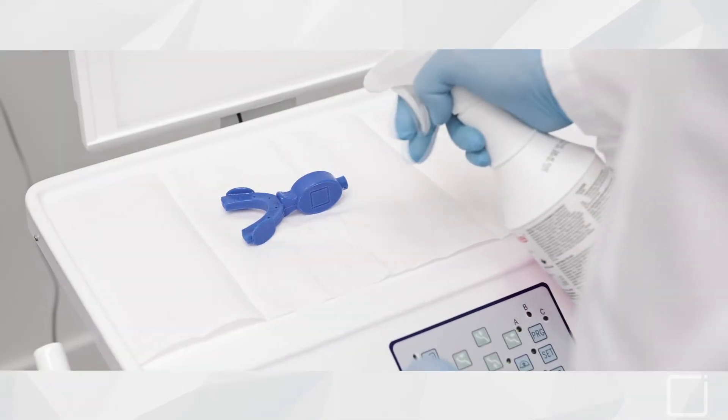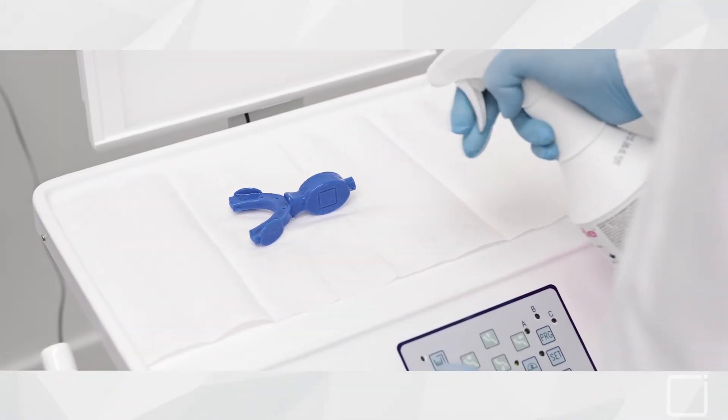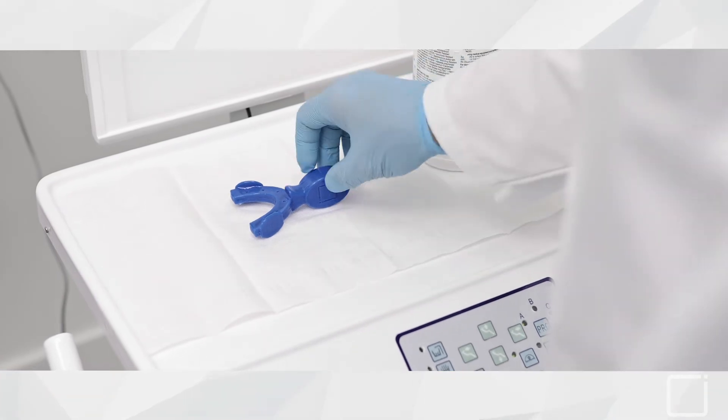After each patient, the mouthpiece must be cleaned with an approved antiseptic before the next measurement.